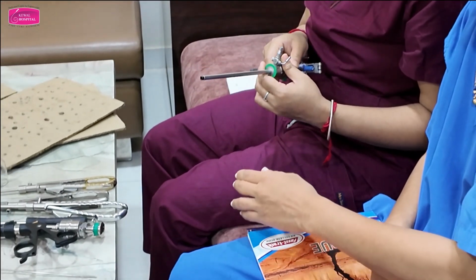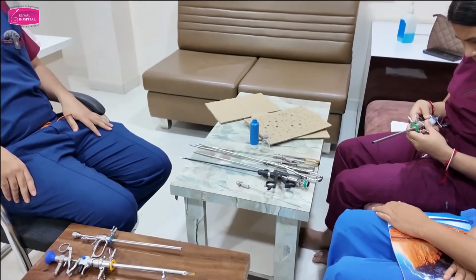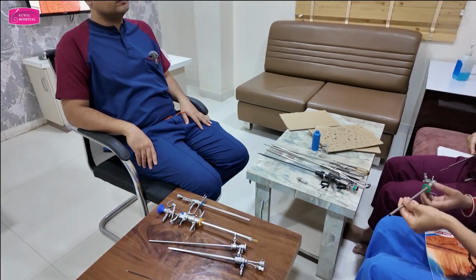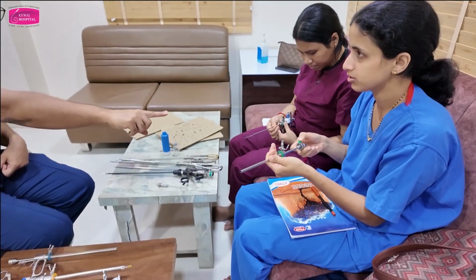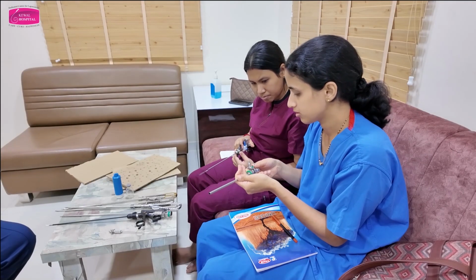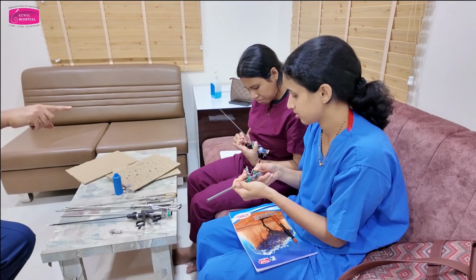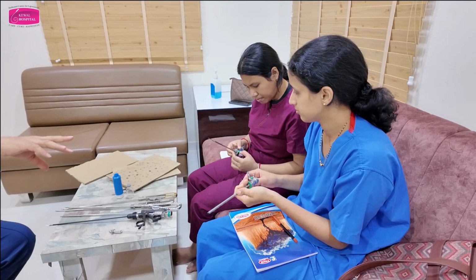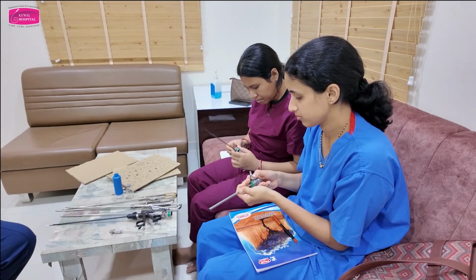Doubt? Any doubt? So you should separately attach inner sheath and outer sheath and then introduce this into this. So this will be easy for you to do. So first thing to introduce is attach the electrode to the working element, then introduce the scope under vision, attach inner sheath to outer sheath, and then attach both the things together. This is the workflow.